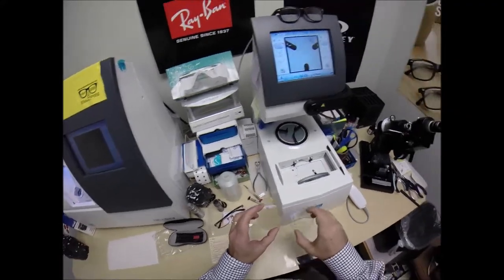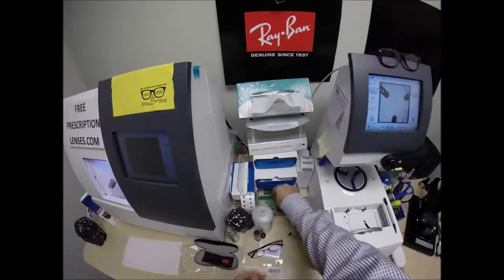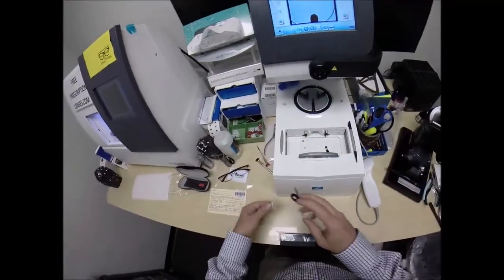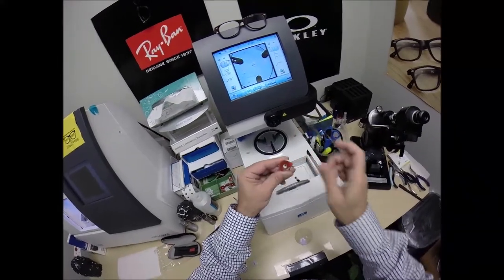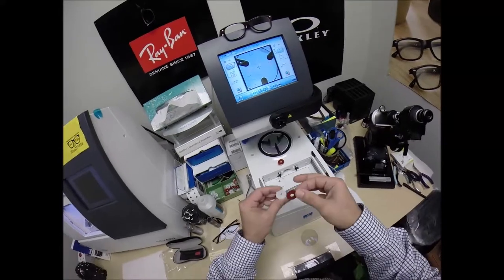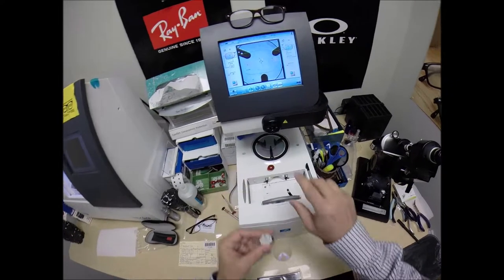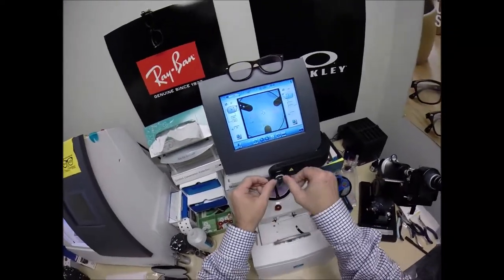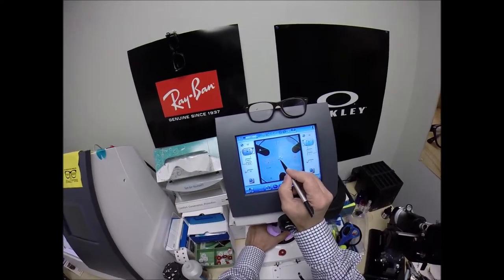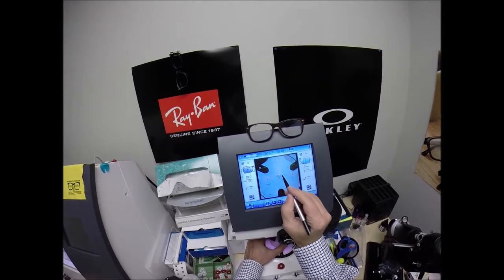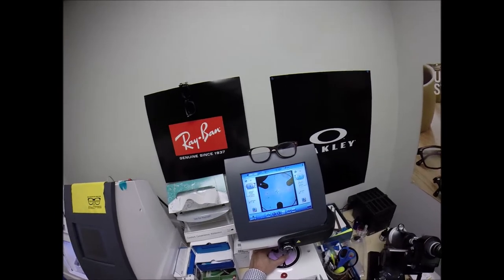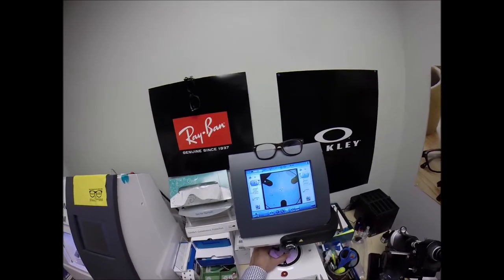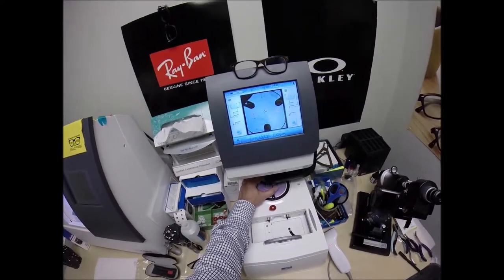Your pupillary distance for your right eye is 34. It also happens to be the same for the left. The computer starts at 32.5, so I'm going to tap the plus button a few times until we get to 34. I want to raise the height up the optical center where your invisible bifocal progressive multifocal lens. It goes by several names. No-line bifocal. And I'm going to change the layout. This is a single vision screen. I want to bring up the screen known as the layout screen for a progressive. So I've gone ahead and I've put the dots in advance on your lenses. Cleaned off the yellow paint that comes with it. I need to attach two blocks to your lenses. The arm comes down and places the block onto the right lens.